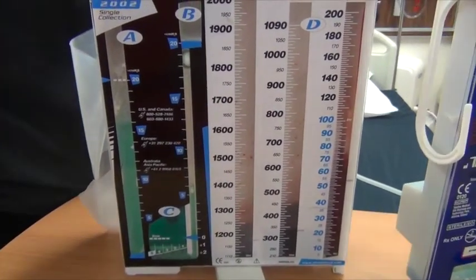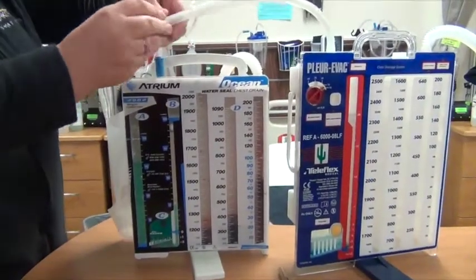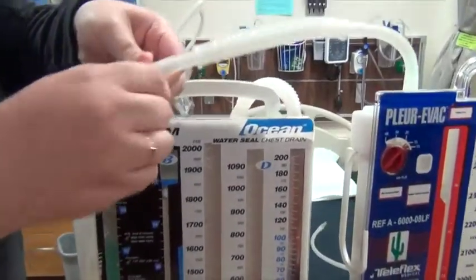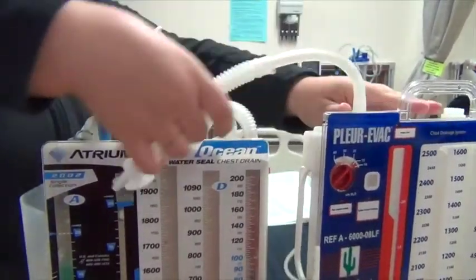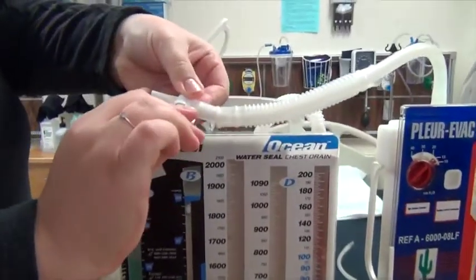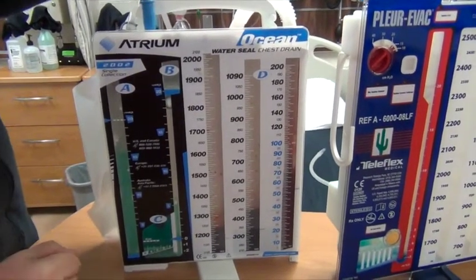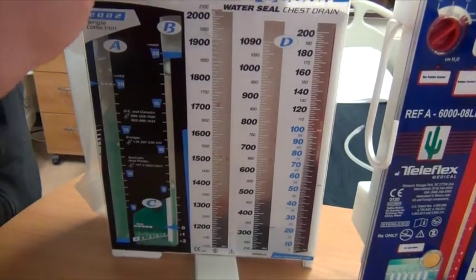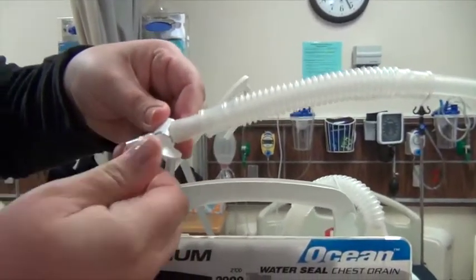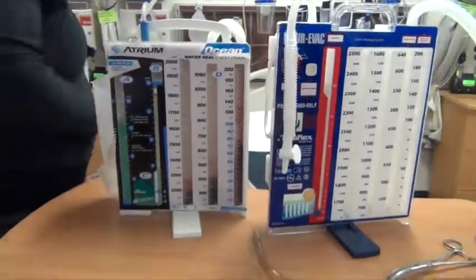Normally, and you know in the lab the suctions aren't totally calibrated, there's this little turn dial here. This is where you can fine tune the suction. I don't know, Katie, if I can switch that. But do you see how this one turns on here? So if you had trouble adjusting it on the wall, like right now the suction in here says 0, they're not calibrated right in here, you would turn the suction on and then adjust this to have a finer control. So you would want this even less.